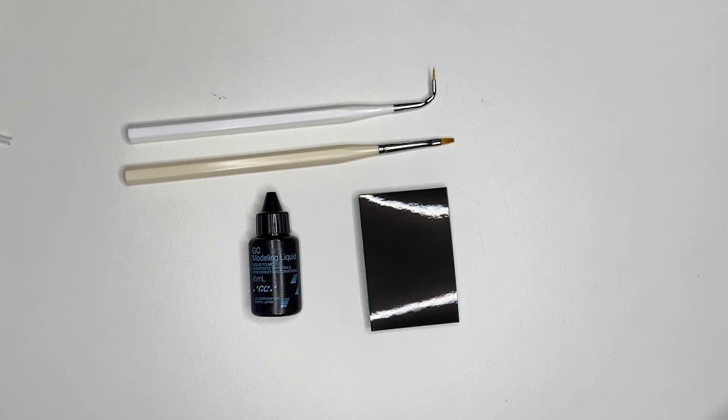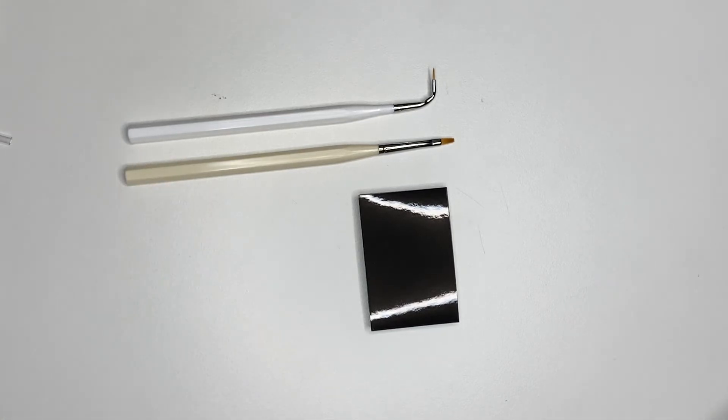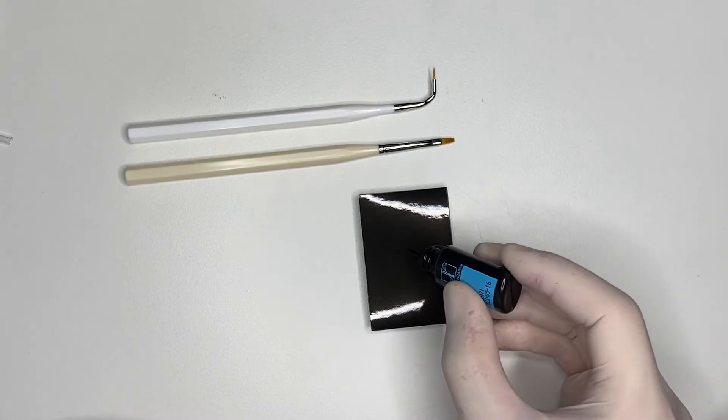Because they'll allow you to manipulate your composites without the use of metal instruments, and this is going to be a major plus for your practice. How are you going to use it? Quite easily. You're going to dispense one droplet.